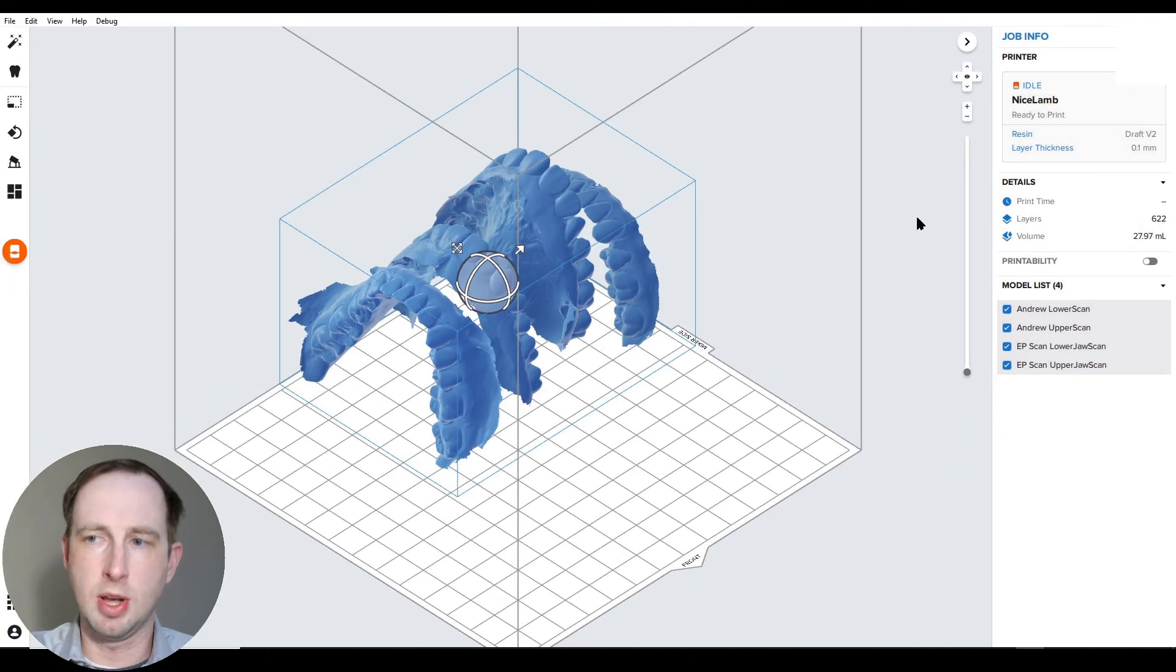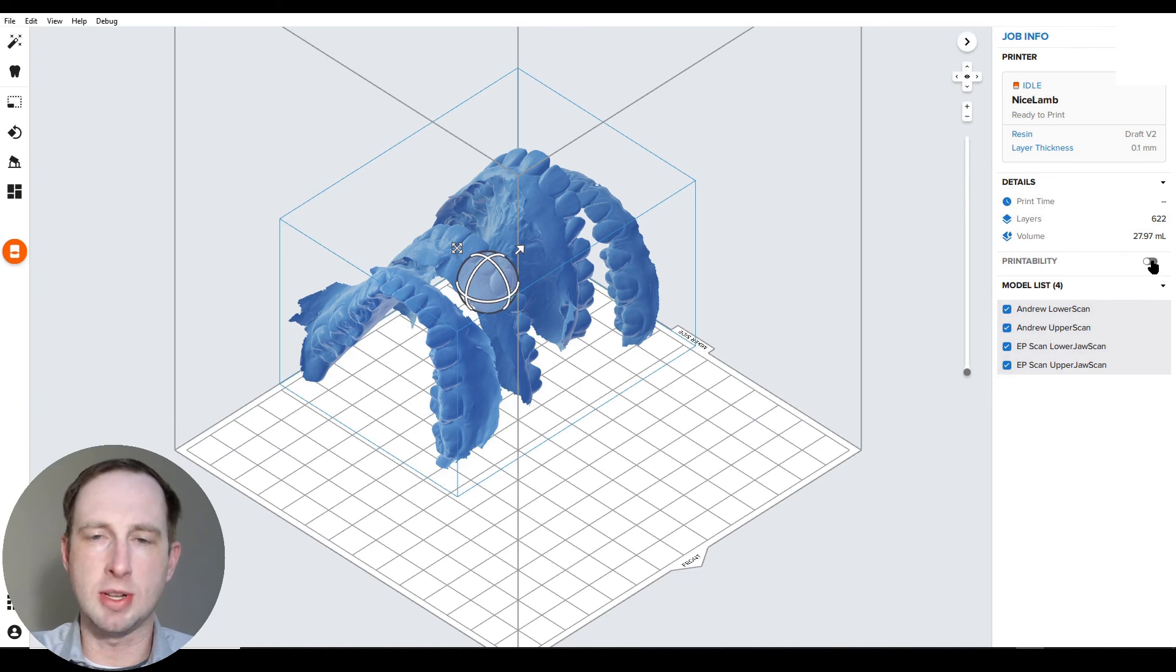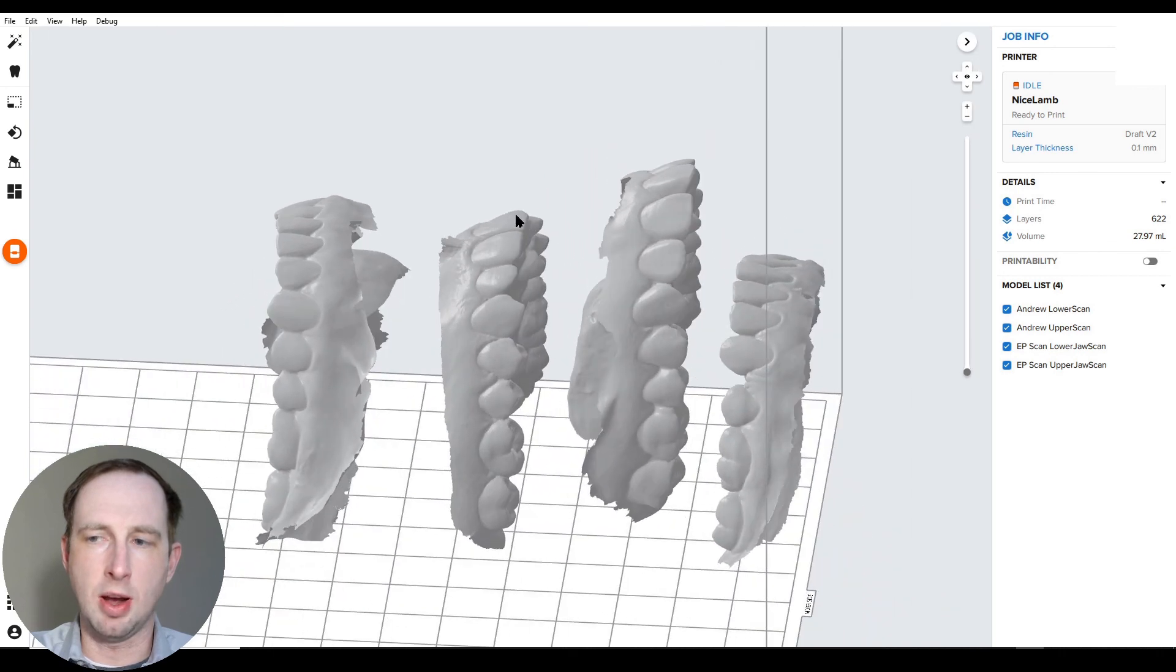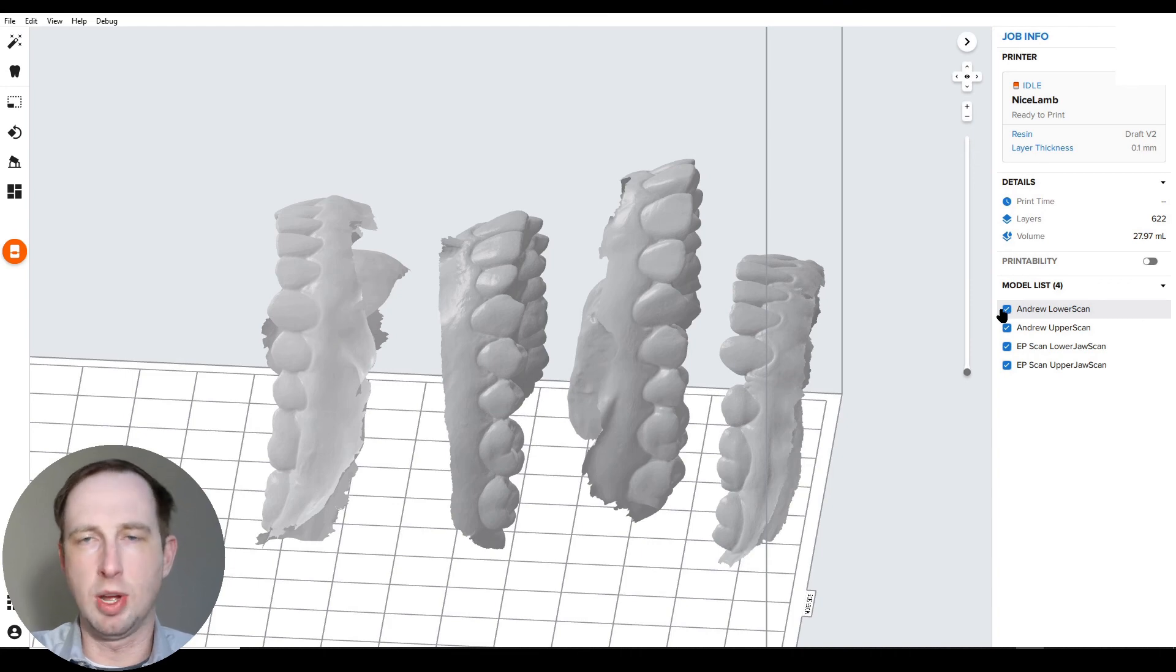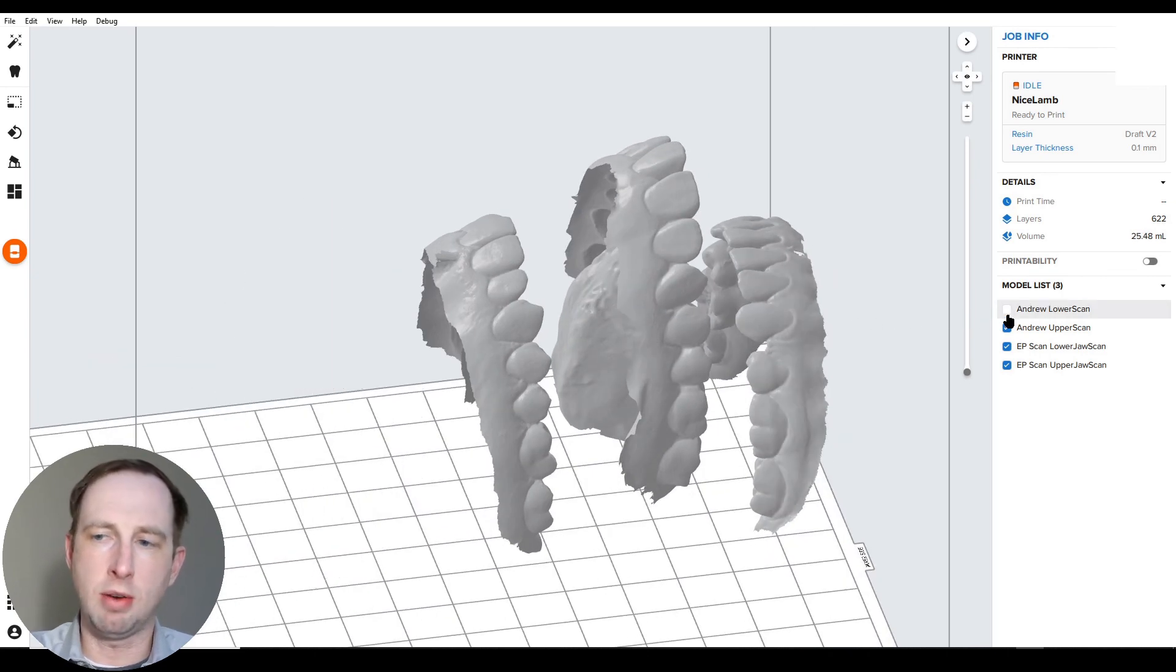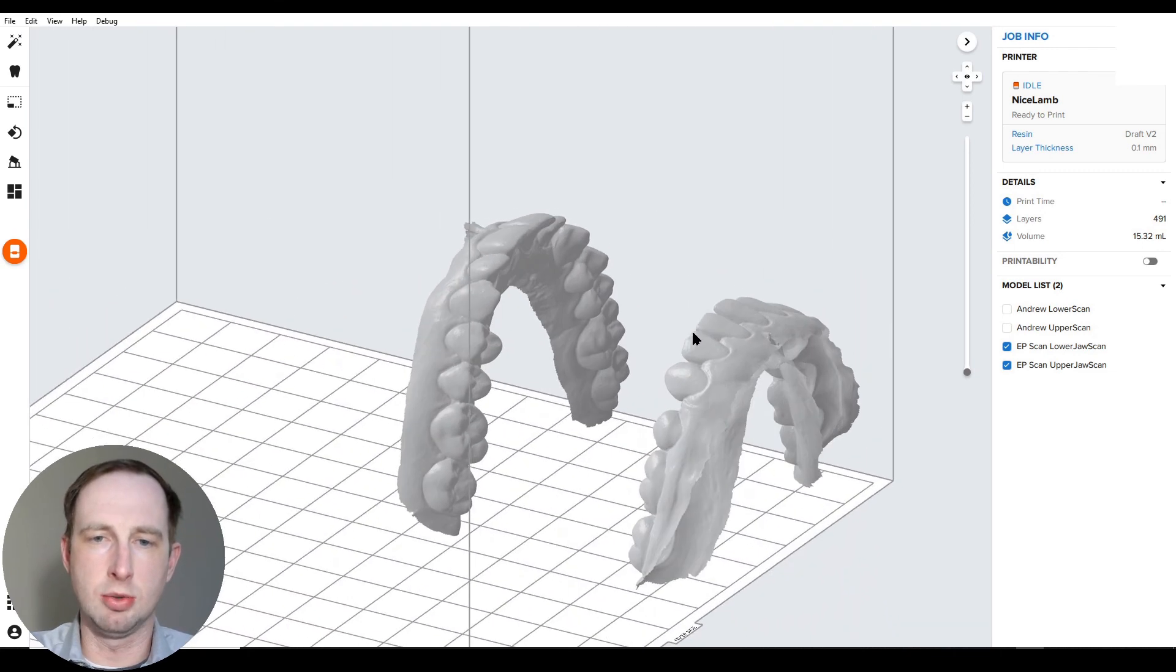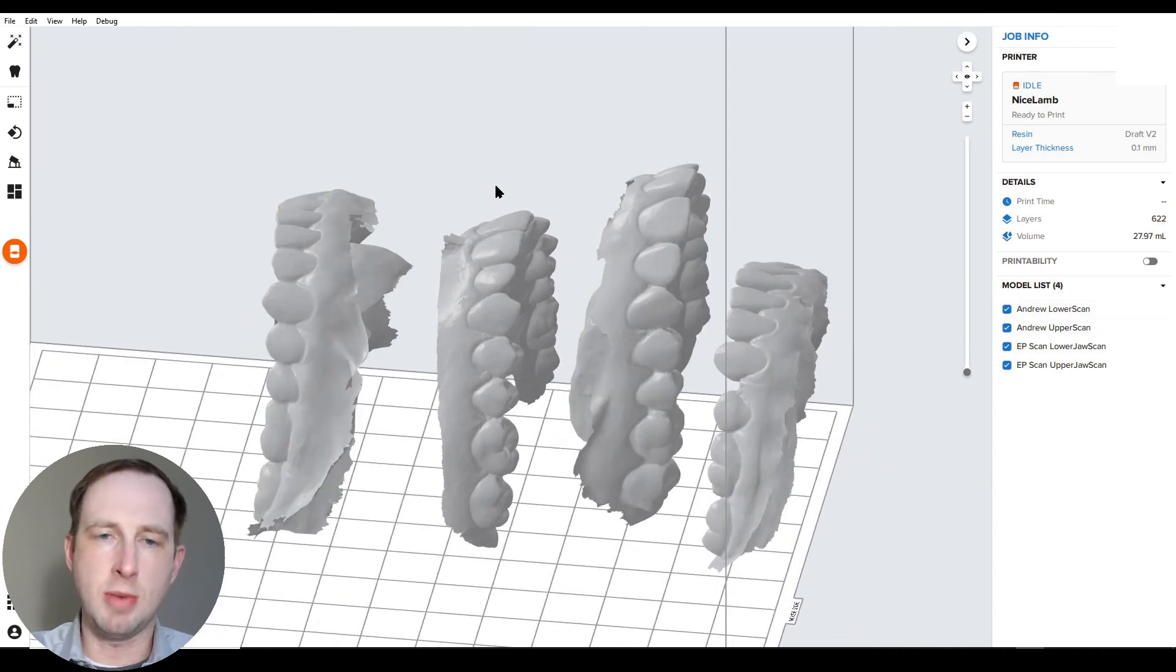I'm going to make this full screen and also make sure to turn off printability. That's one of the nice things the import feature does, it turns that off for you automatically. The last thing I want to show here is it's really important to know that on the right-hand side, the model list allows you to work with multiple files, making it easier. You can click off these boxes to hide and show files and parts. This is extremely useful.